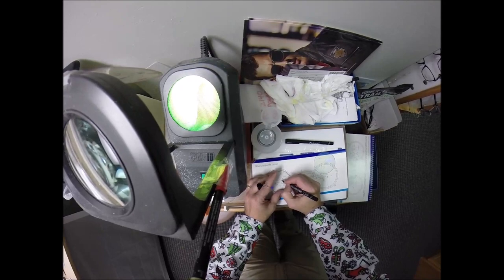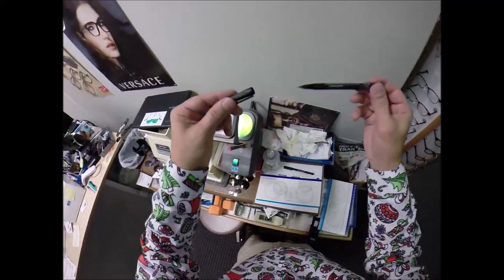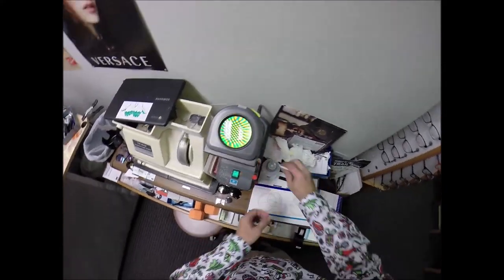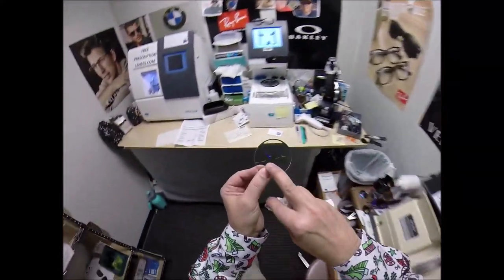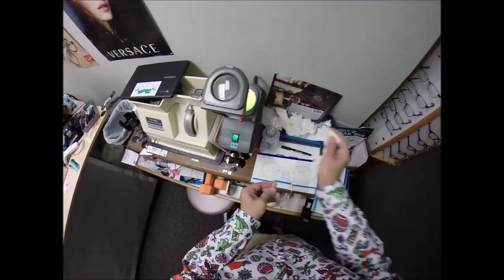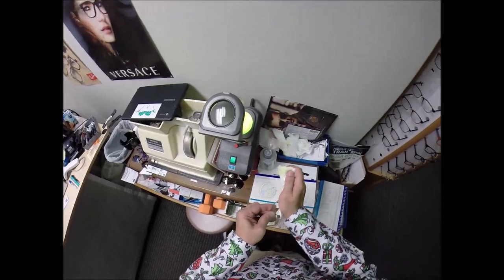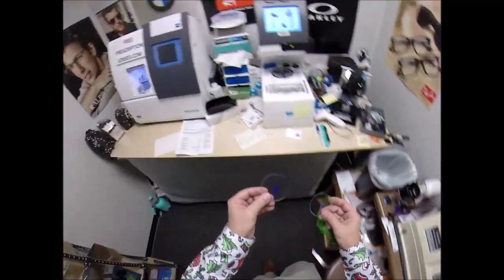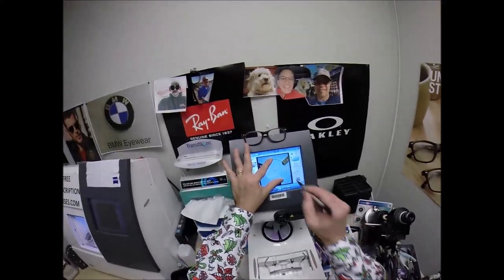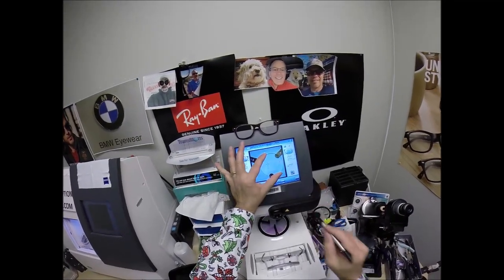The layout chart tells me where the dot will go right in front of my pupil. I take a tissue — there is yellow paint on this lens from the manufacturer that I always remove before I cut, because I don't want to use a harsh chemical near your frame. The reason those dots are on there is to confirm perfect placement — the black dot corresponds to the pupil, and the blue cross is the geometric center of the frame. My eye is just above that, inset. Zeiss has a six-drop; Essilor has a four-drop.